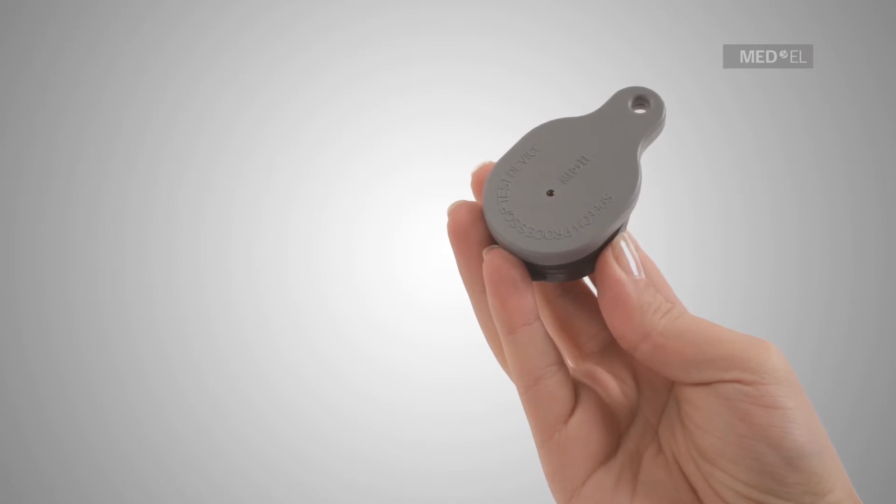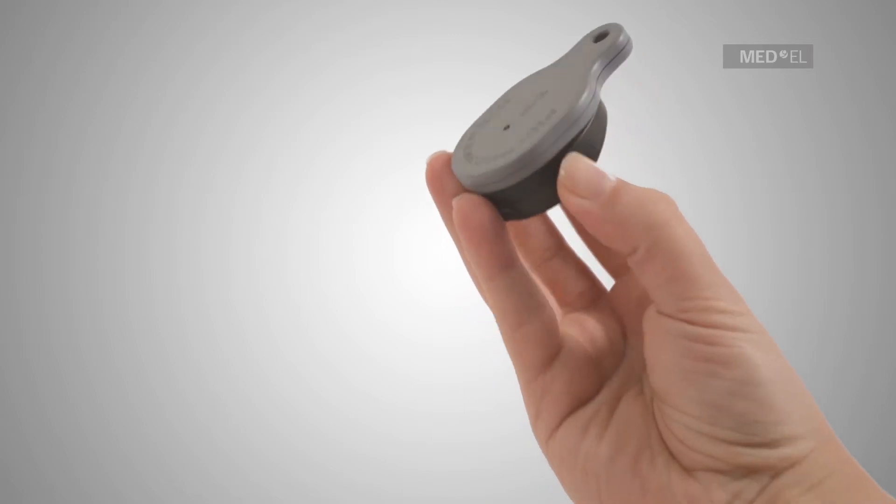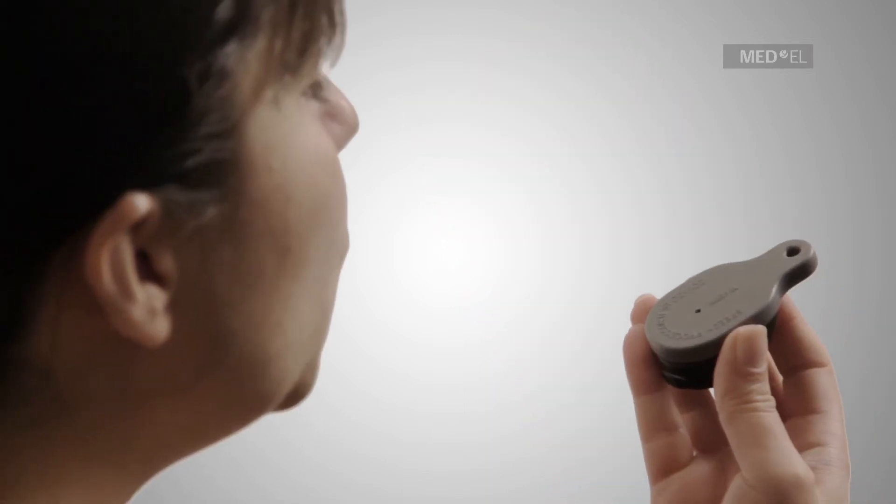When speaking or whistling into the microphone, the red light should flicker in rhythm with your voice.